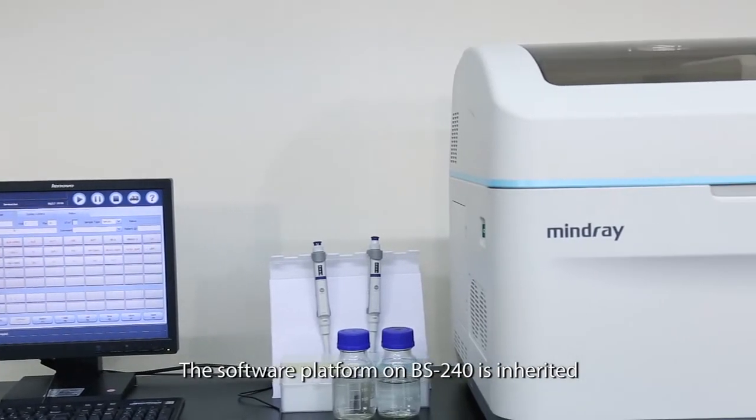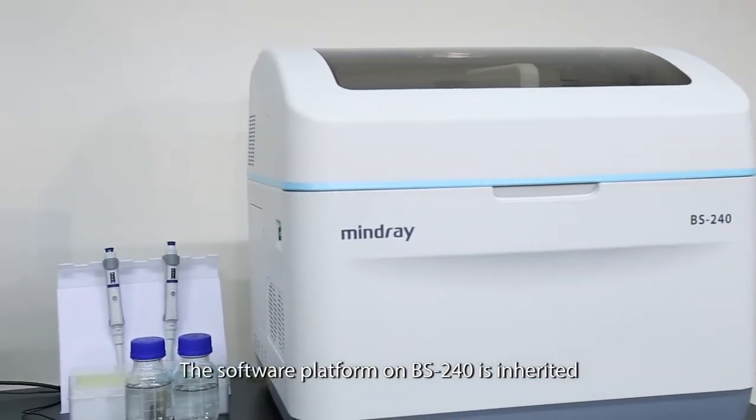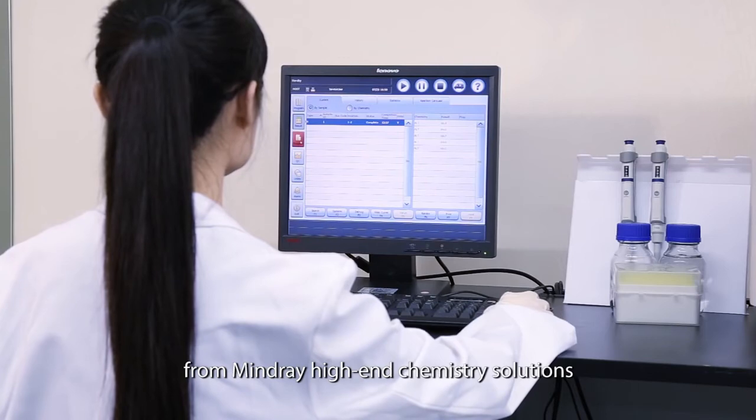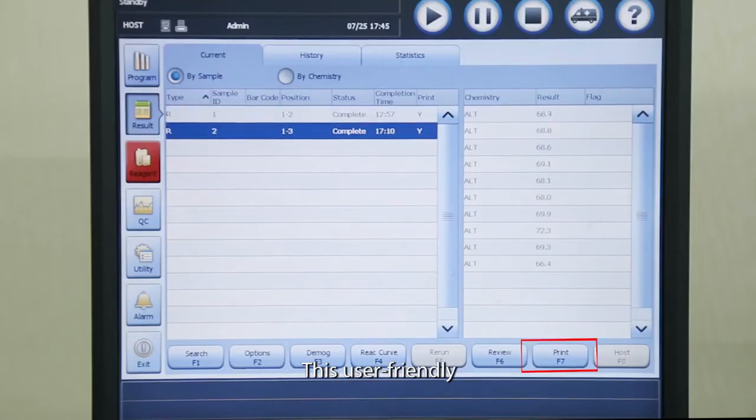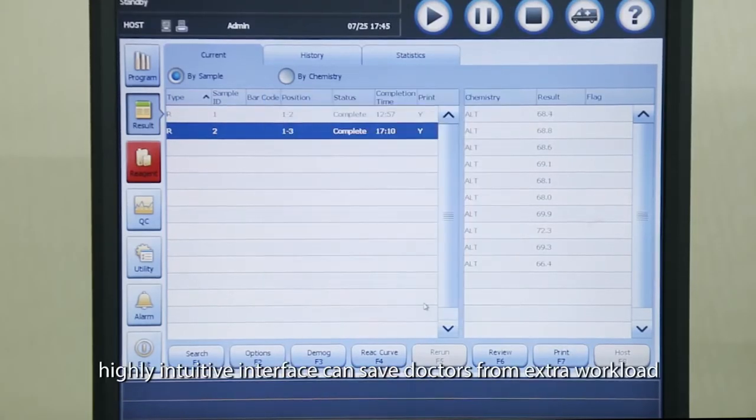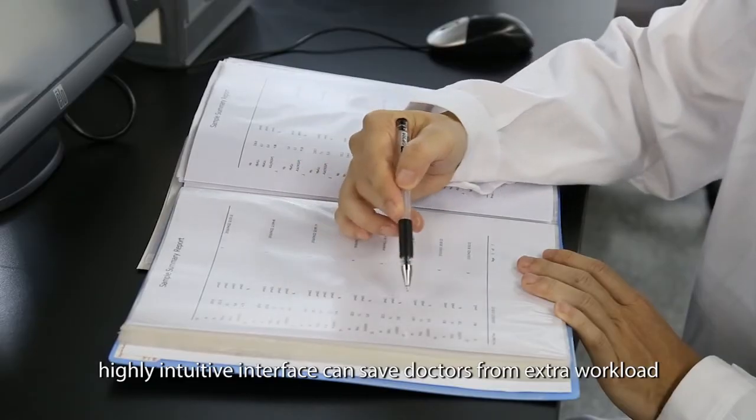The software platform on BS240 is inherited from Mindray high-end chemistry solutions. This user-friendly, highly intuitive interface can save doctors from extra workload.